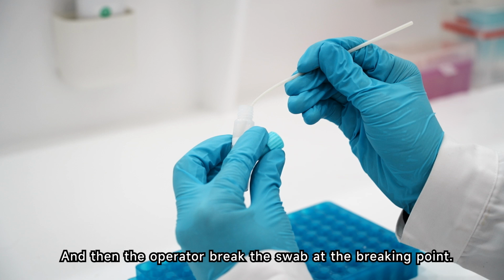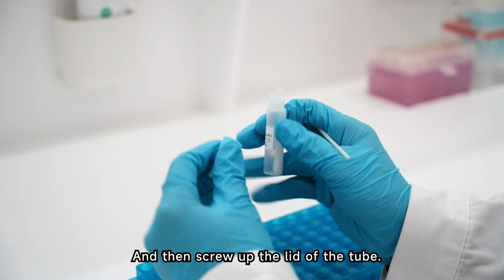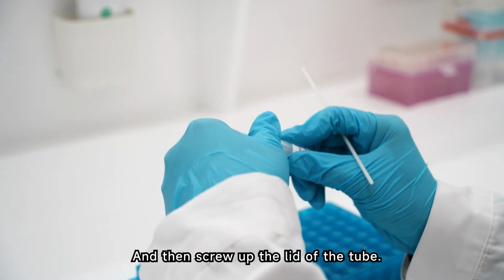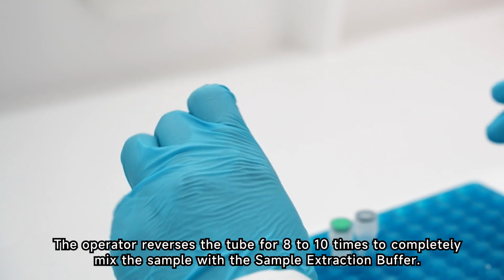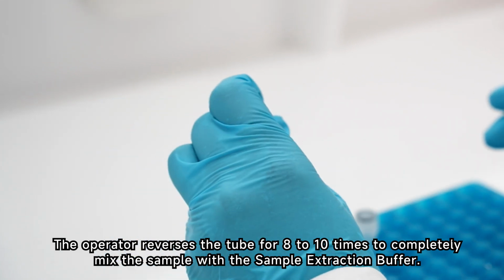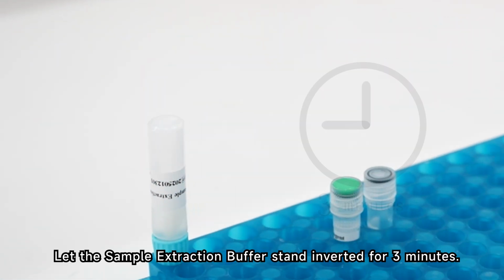And then the operator breaks the swab at the breaking point, and then screws up the lid of the tube. The operator reverses the tube 8 to 10 times to completely mix the sample with the sample extraction buffer. Let the sample extraction buffer stand inverted for 3 minutes.